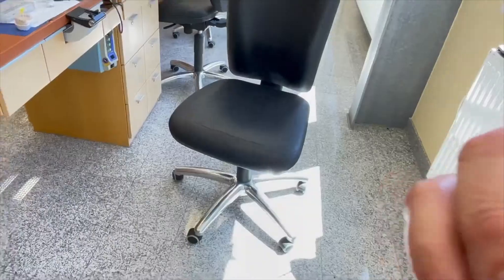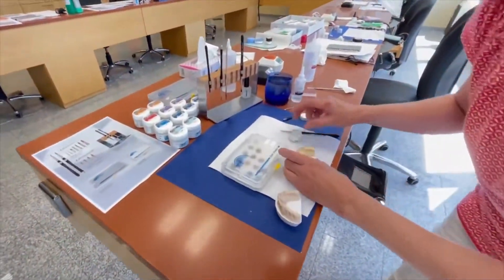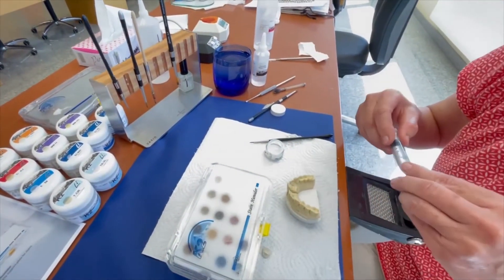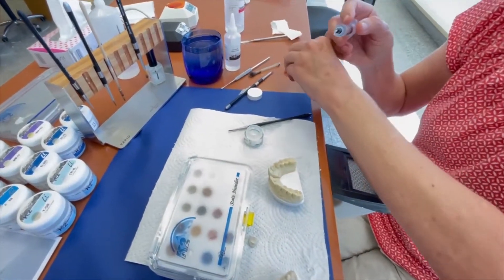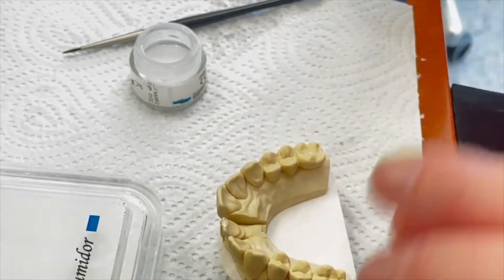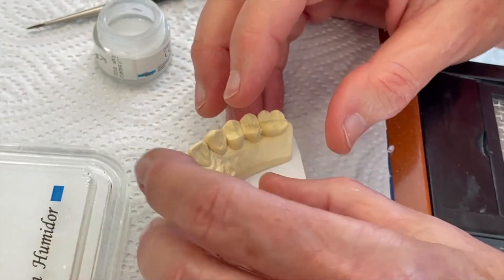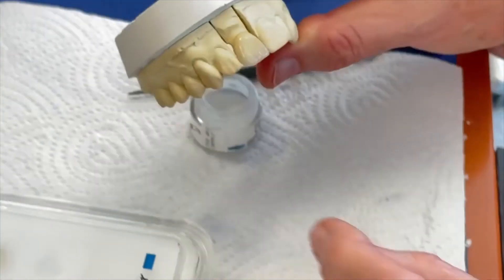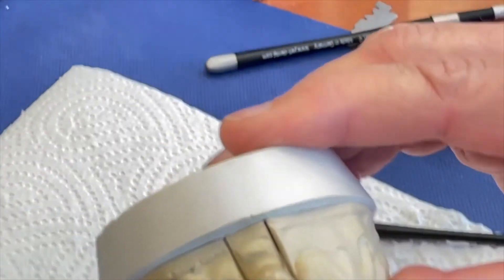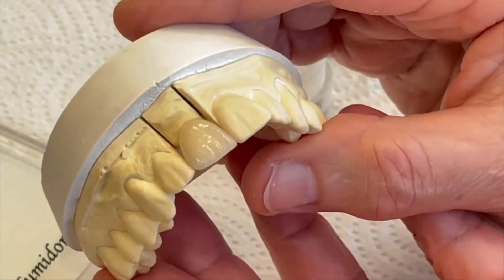There was an issue with the crown falling down. For this step we have a product which is currently in research, but we want to show you something very helpful in the lab. She puts a little bit of this material on the die, sets the crown on, and now you can see it is fixed. This is helpful for you — it is better than getting cracks in the crown.